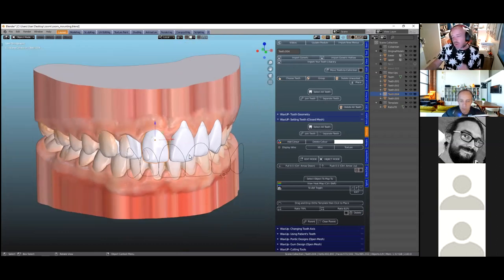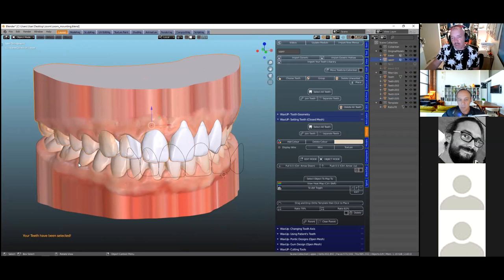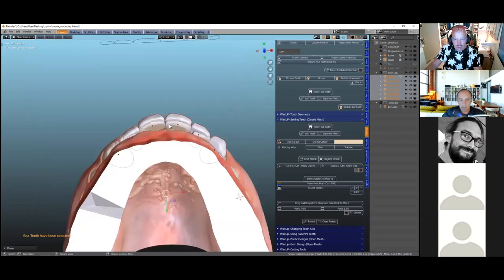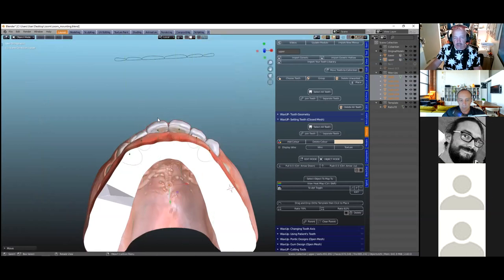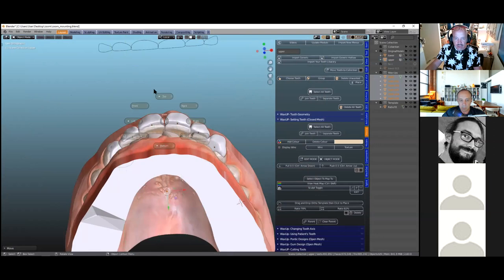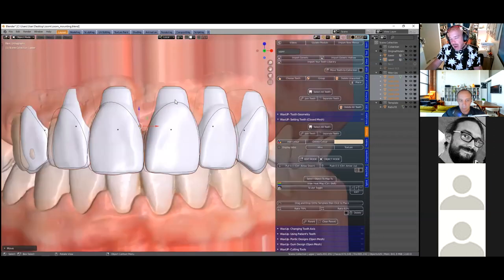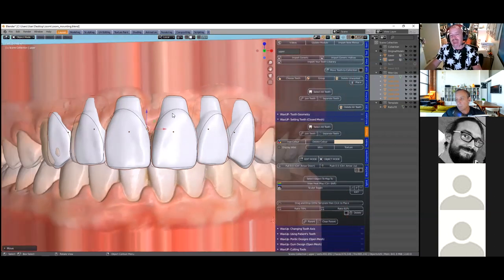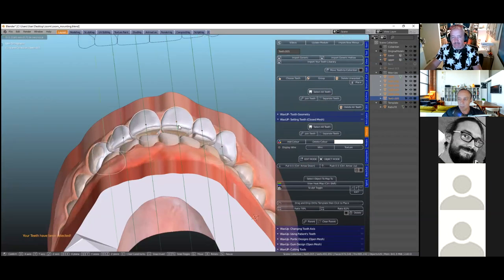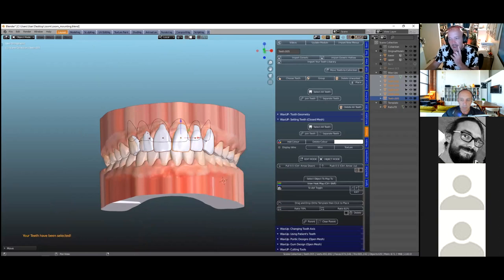Because we've moved the tooth library into the collection, we can now click 'select all teeth' and it will select all teeth automatically — very useful whenever you lose your selection. Then you can move them all. For example, if we want to bring these teeth forward we look at the tooth ratio again and see if the roots are sticking out — if so we can push those roots backwards into the underlying dental model.